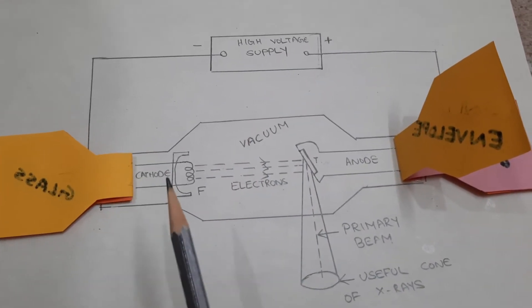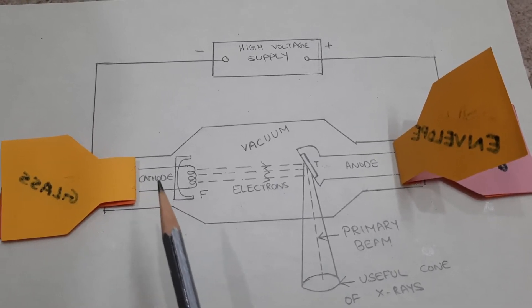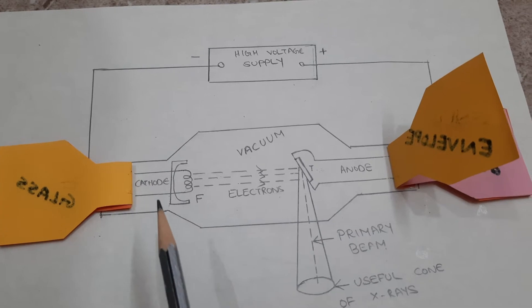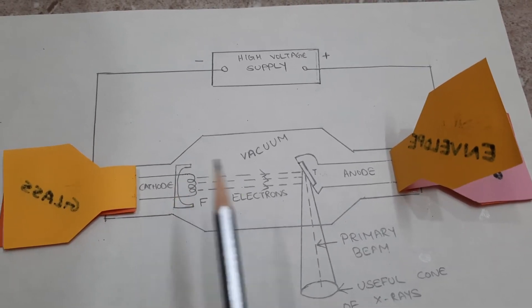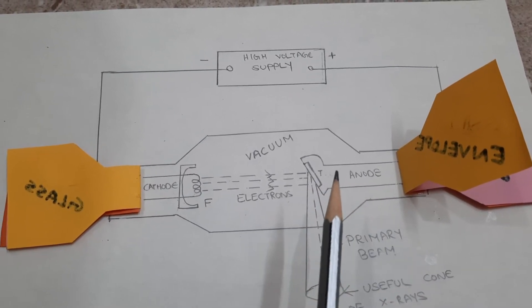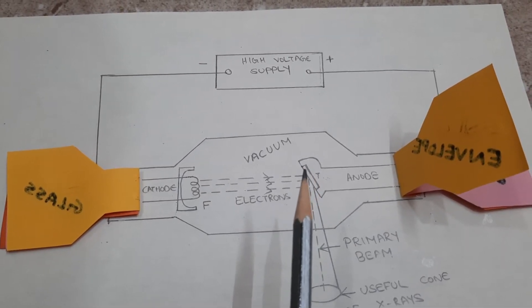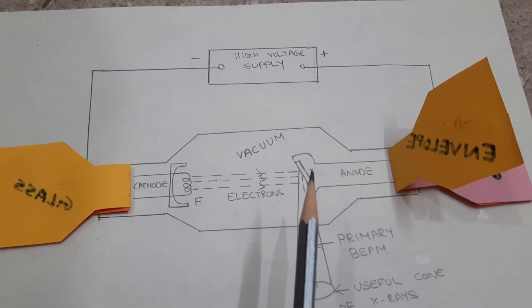The cathode is made up of tungsten — it is a tungsten filament. Surrounding the tungsten filament we have a focusing cup, which is made up of molybdenum. The anode is made up of copper material, and inside the copper there is a tungsten button embedded, which acts as the target.